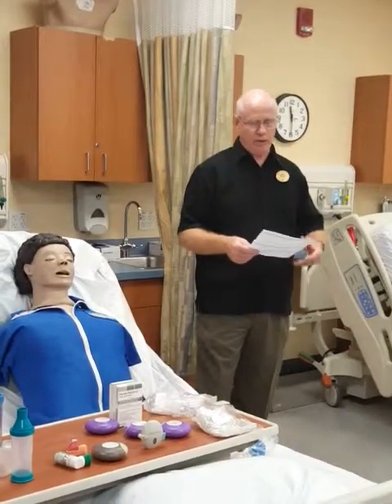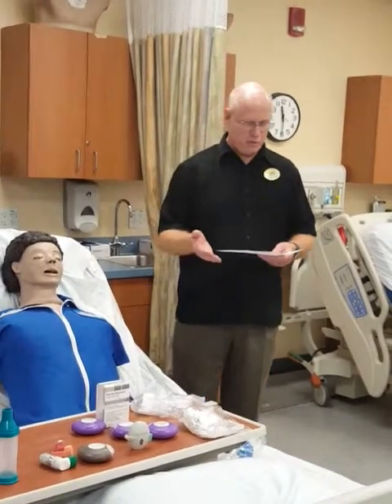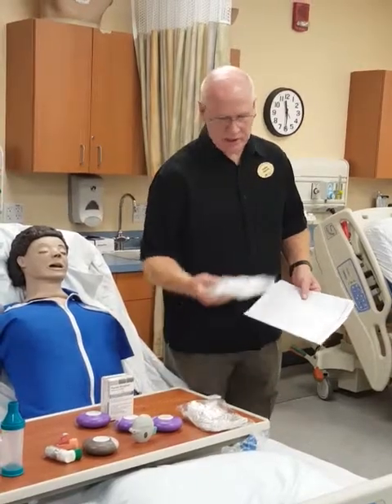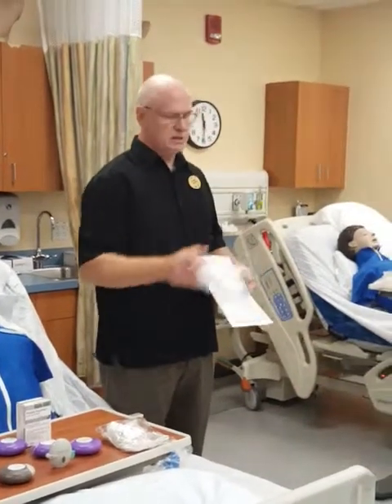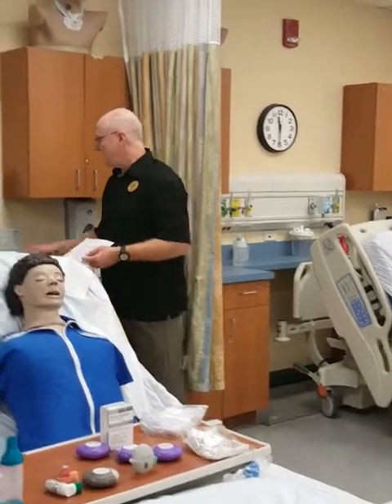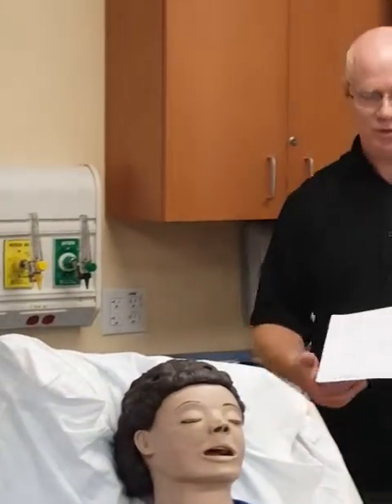You're going to gather the necessary equipment. The equipment involved in delivering a small volume nebulizer is fairly simple — it's going to be a small volume nebulizer, which is prepackaged. And then of course you're going to have to make sure that you have a flow meter, either air or oxygen.